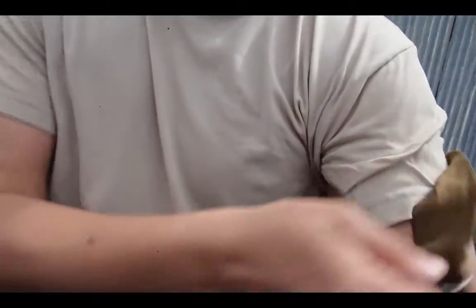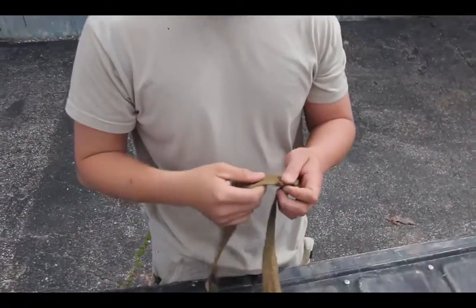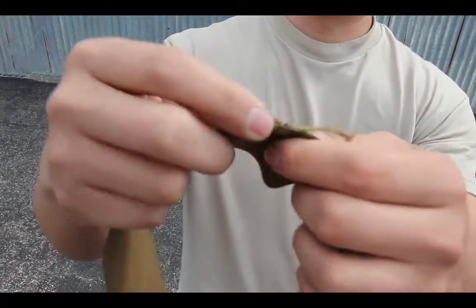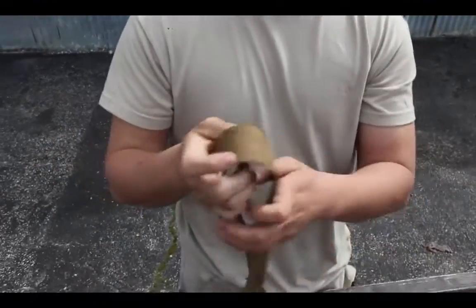That's how a tourniquet can be removed for training purposes. Also, tourniquets are technically one-time use only — every manufacturer marks them that way, there's always a two with a big cross through it, meaning you can't use it twice or more. So make these your training tourniquets. After you start practicing with them they will tear and abrade. This one has been riding around in my pocket — that's where those little nicks come from. Would it still work? Yes, absolutely. But just like you cycle out your ammo, check your medical equipment too.